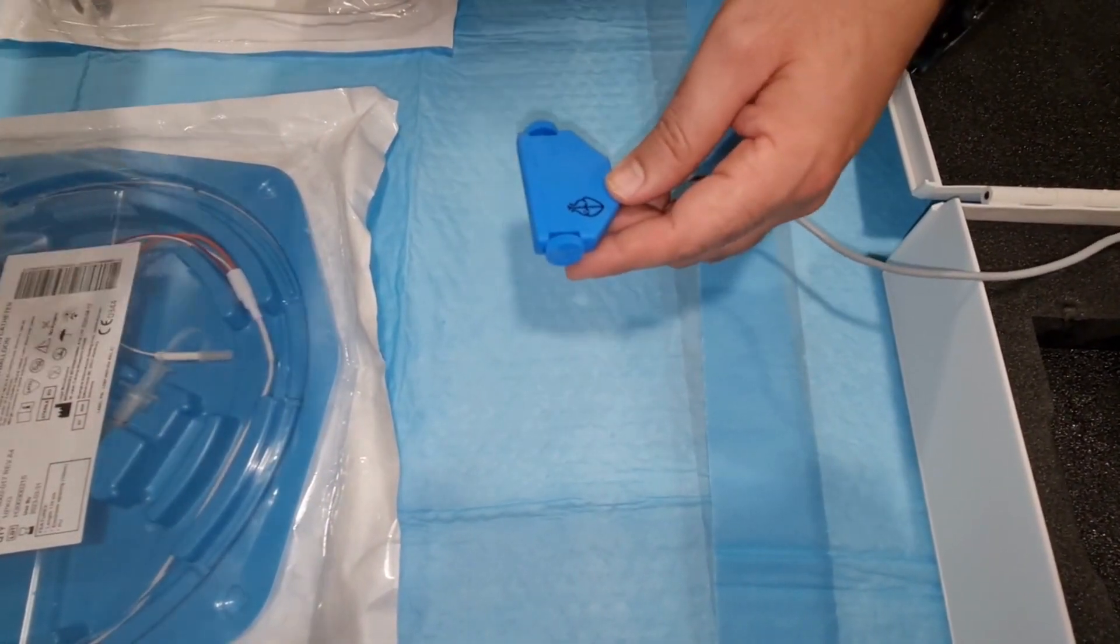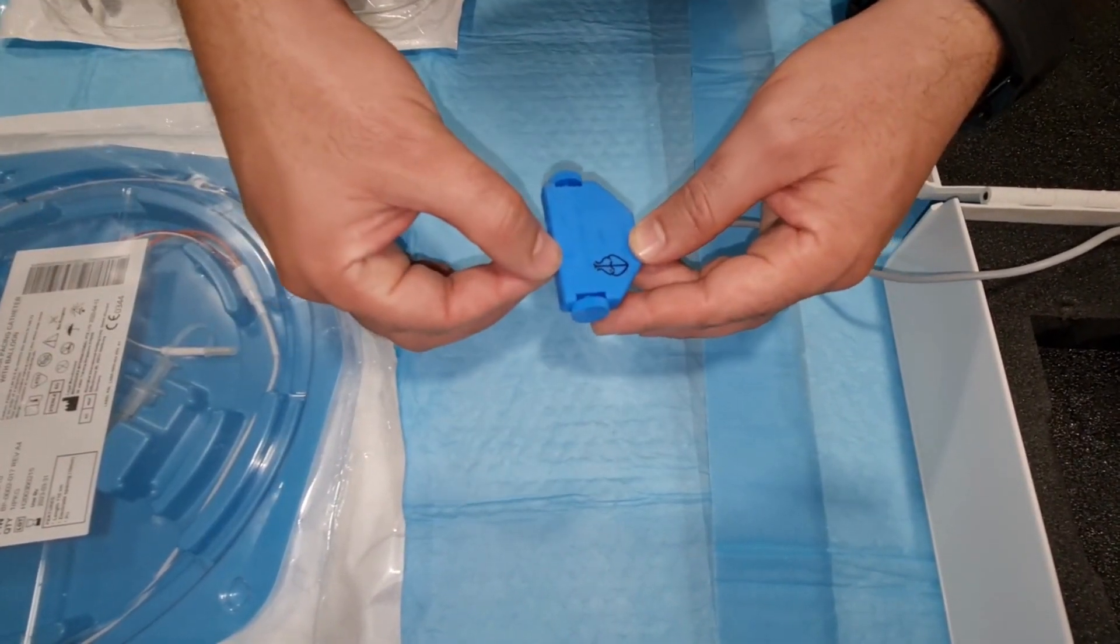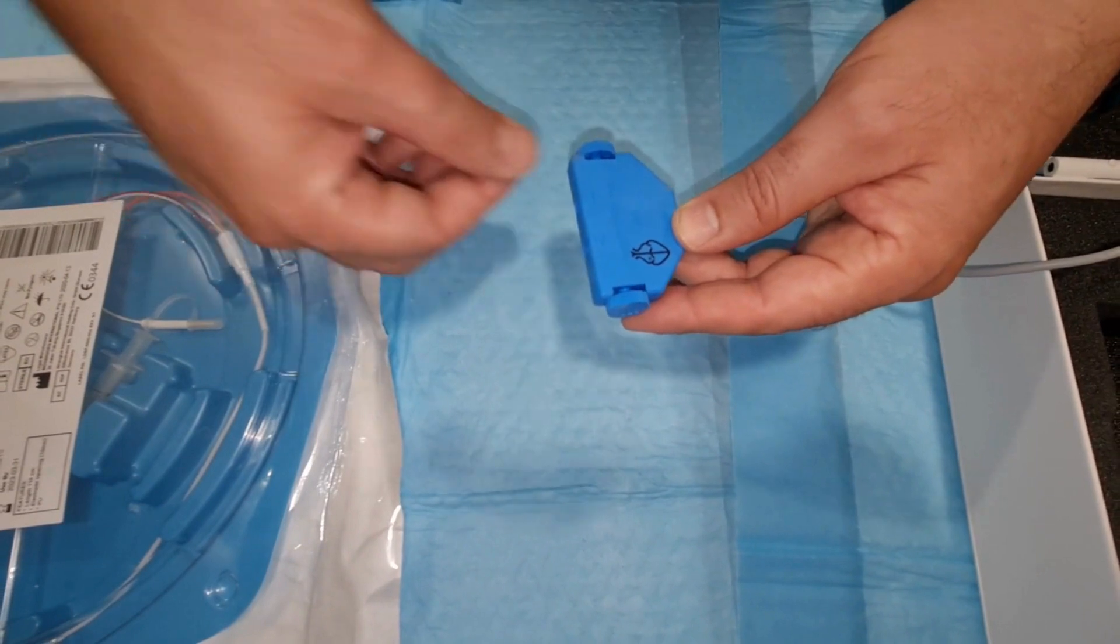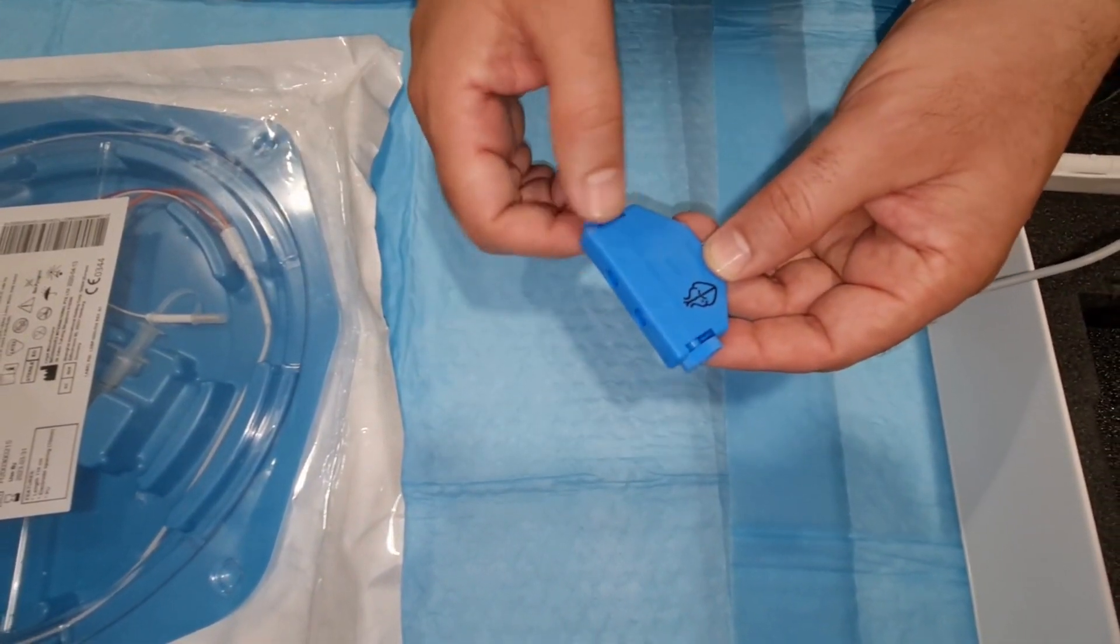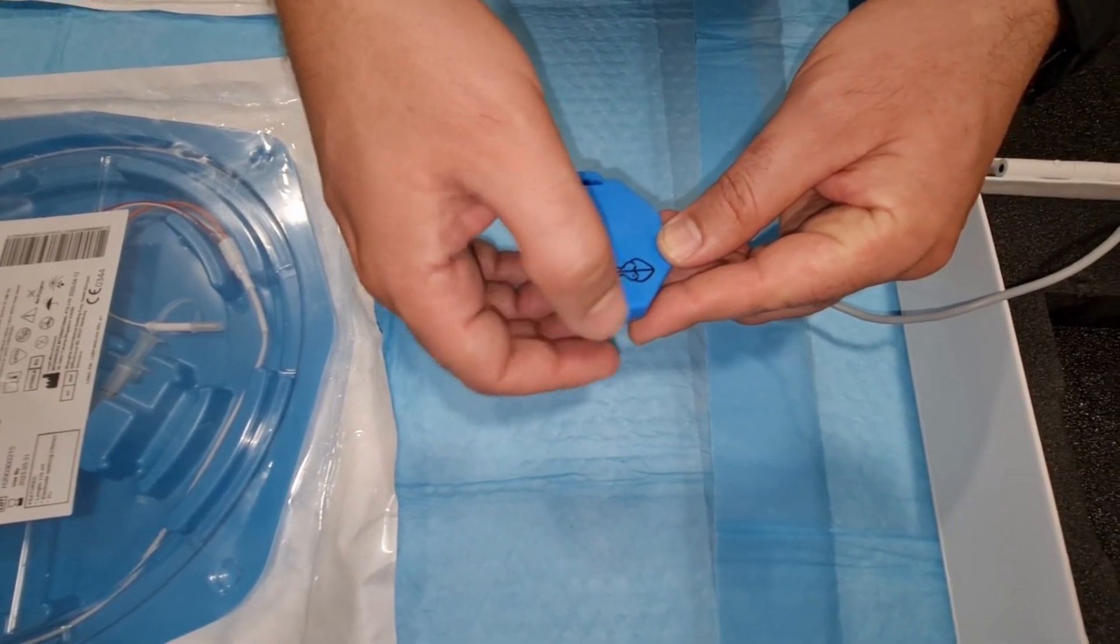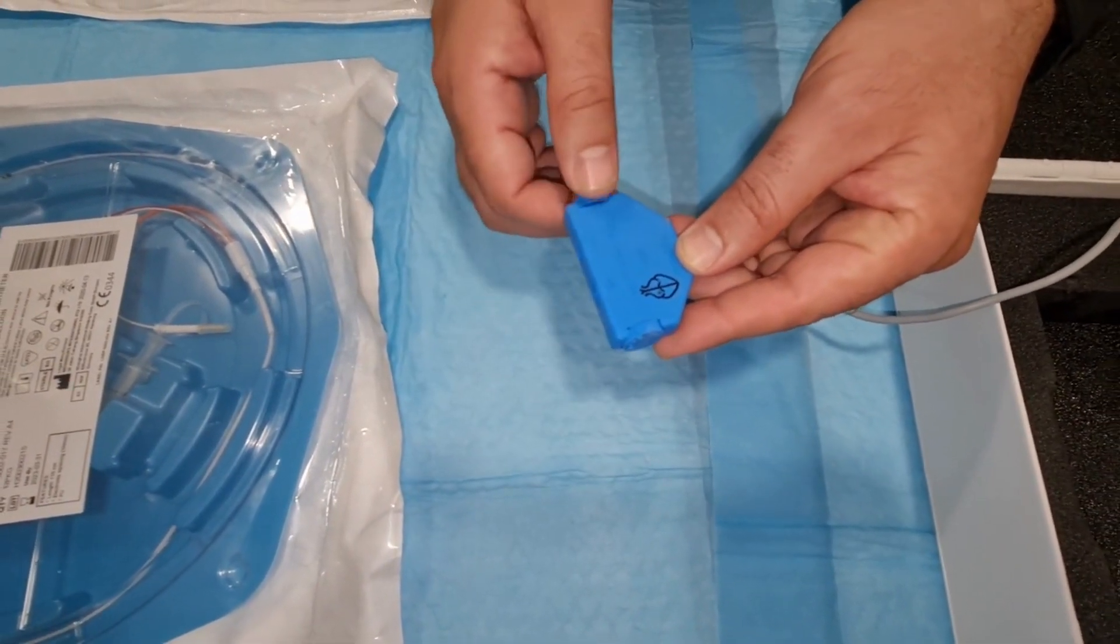From the TPM lead, once it is inserted, you can connect the red into the positive cable port and the negative cable into the negative port. Make sure to tighten this to avoid any pulling and stretching. Once it's tightened, that's it.